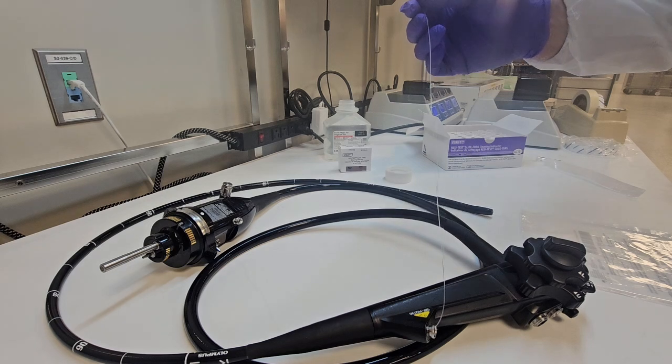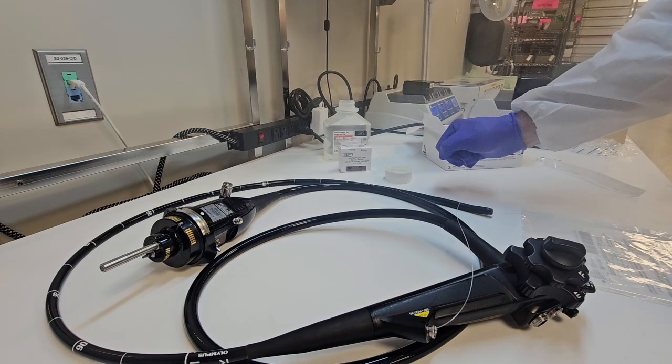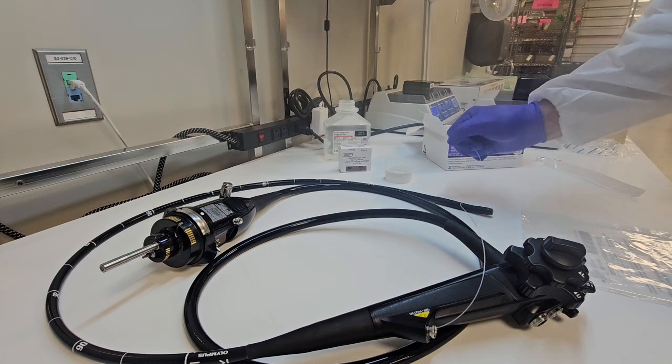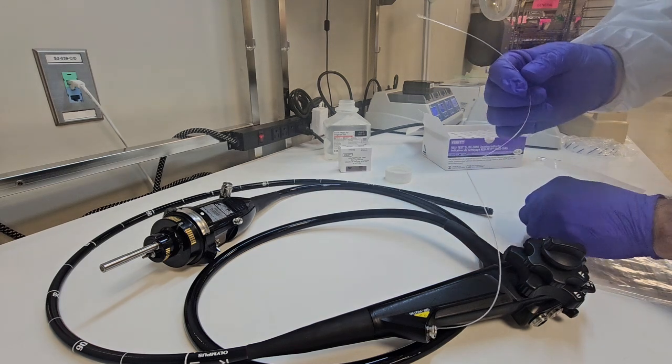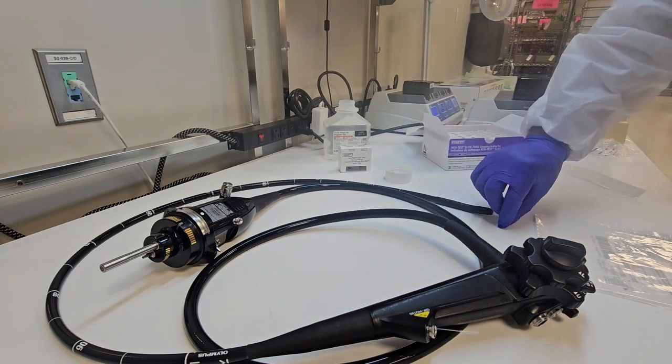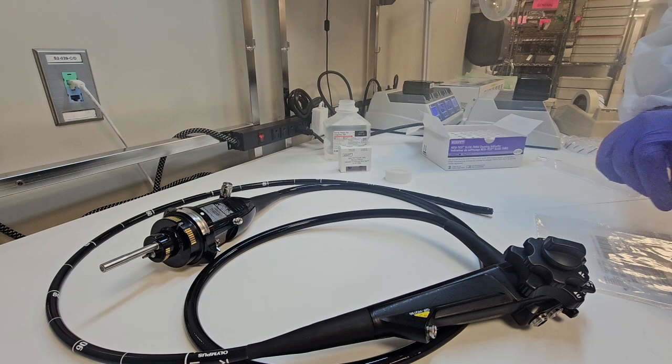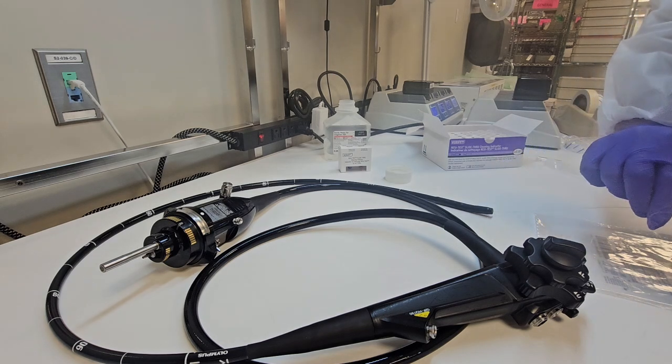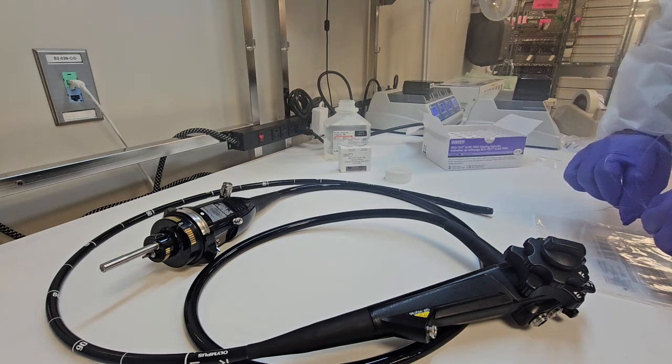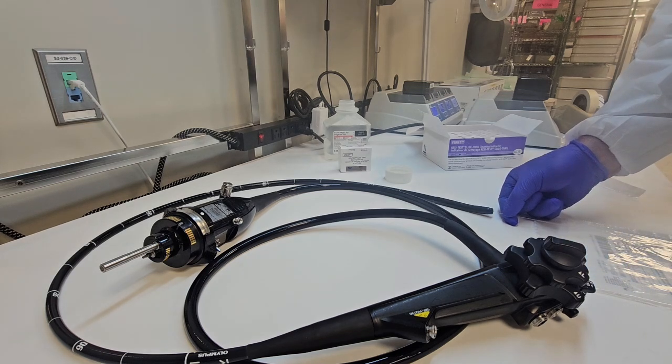But while you're advancing that squeegee or brush, you want to feel for any resistance down that channel. That resistance may indicate internal damages to that channel. And with that being said, when you're pulling that through, do not force the brush through there because it may exit.